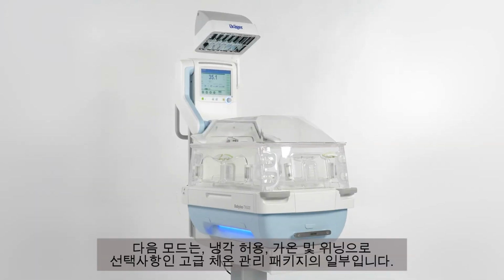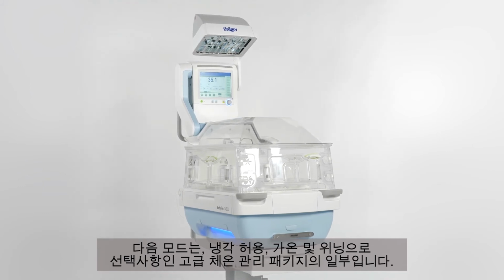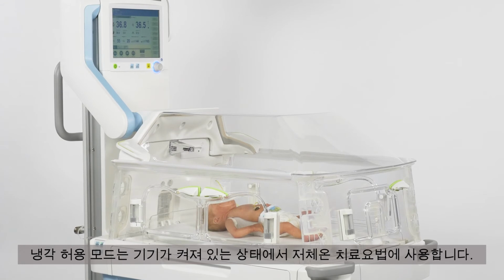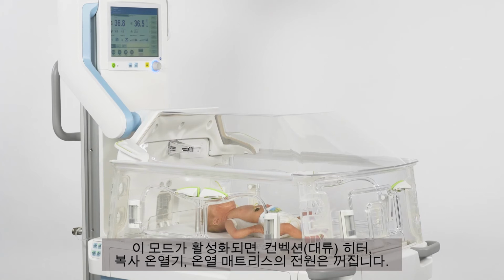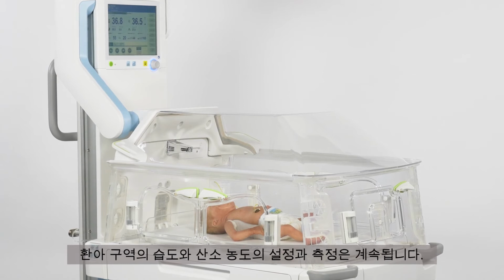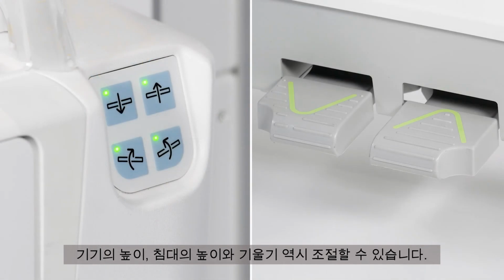The next modes, Tolerate Cooling, Warm Up, and Weaning, are part of the option Advanced Thermo package. The Tolerate Cooling mode allows you to provide therapeutic hypothermia to the patient while the device is switched on. When activated, the convection heater, radiant warmer, and the heated mattress are switched off. The humidity and oxygen concentration in the patient compartment are still set and measured. The device height can also be adjusted, as well as the bed lift and tilt.